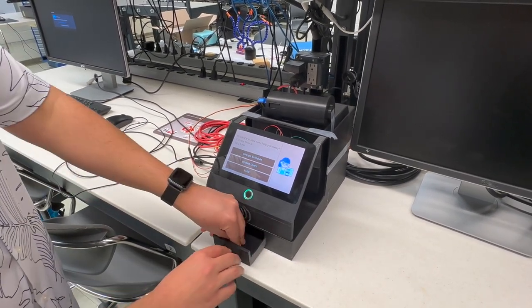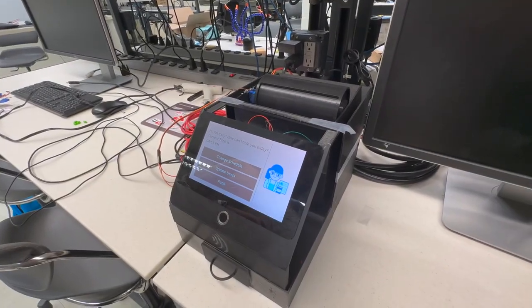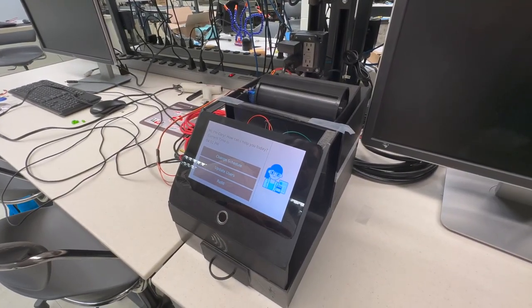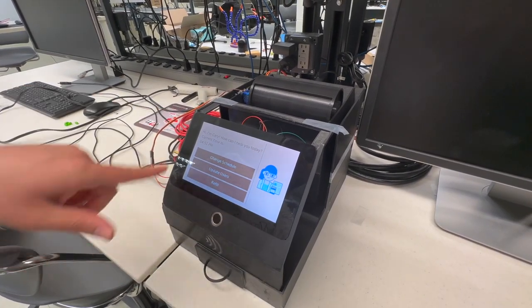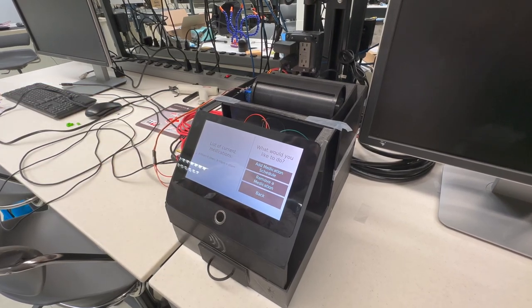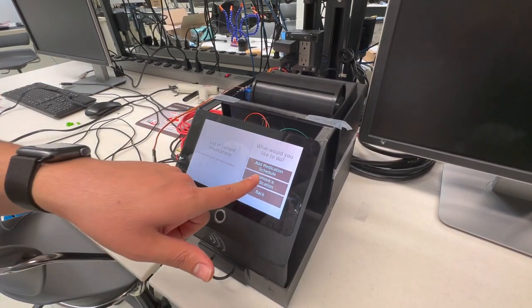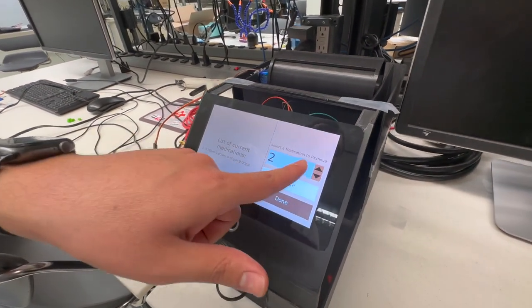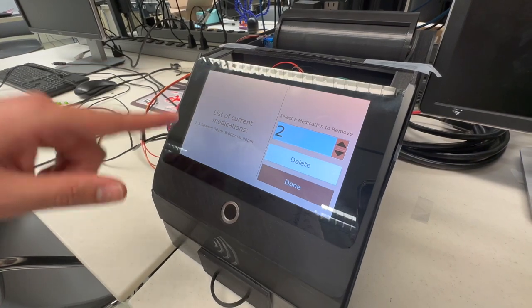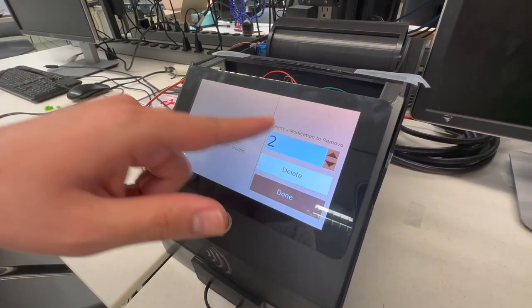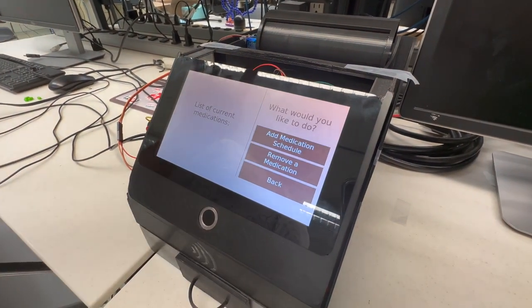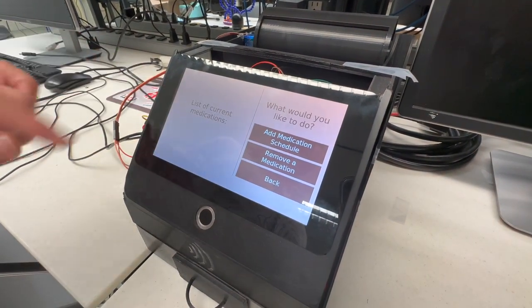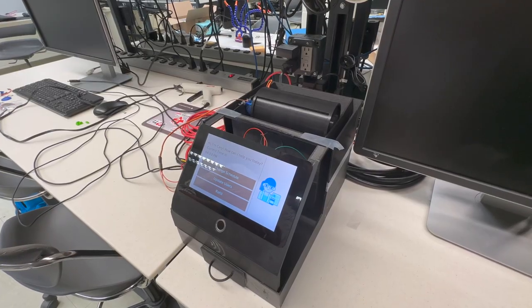You can remove medication from your regimen if you are no longer taking that prescription. From the main menu, go into the change schedule submenu. On the left you'll see the current medications you are taking. Go into the remove a medication submenu and select the number that corresponds to the chamber in which your prescription is in. In this case, let's delete that one. Once you hit done, the previous menu shows no medications because we just deleted it.